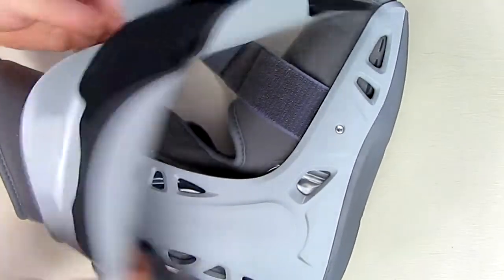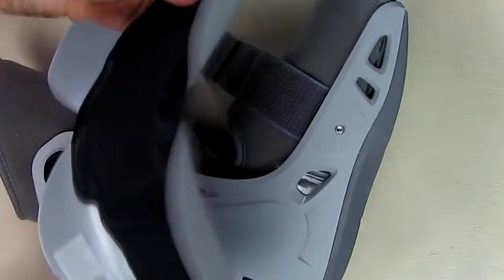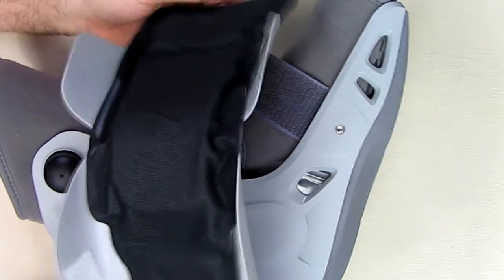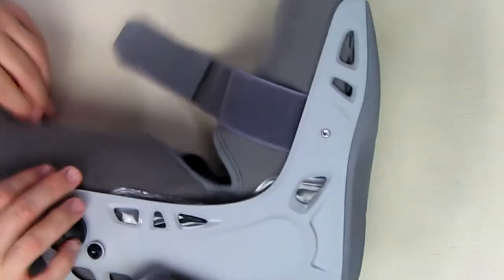You can see this outer shell right here — very nice quality. It has some foam, almost feels like memory foam, with a kind of nice fiber material. Now if you look at the inside of this, let's open up the inside right here.